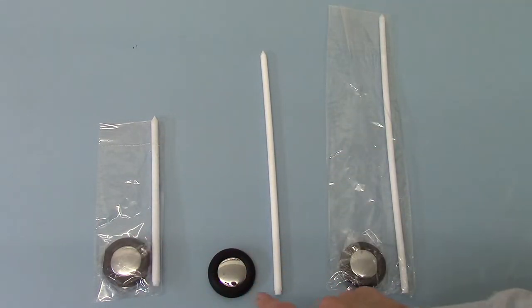The hammer heads, if you just note on these three variations that we offer under the Valumed branding, the head itself is identical across all three.